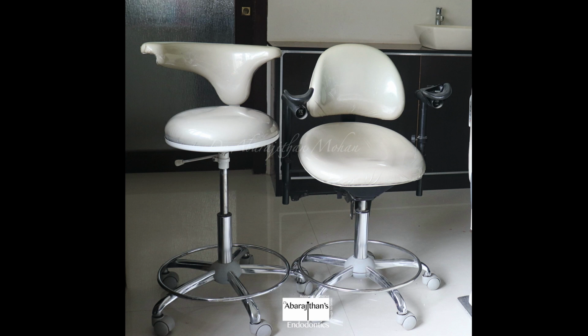So in my practice, what I prefer is the operator stool. The double armrest is used by me as the operator, and the one without that is given to my assistant. So if you can afford the chair with double armrest for both yourself and your assistant, definitely you can go ahead with doing it. There might be some differences from what we are recommending and from what is being practiced abroad, because basically the difference in the brands that is being used and also the availability of those products.